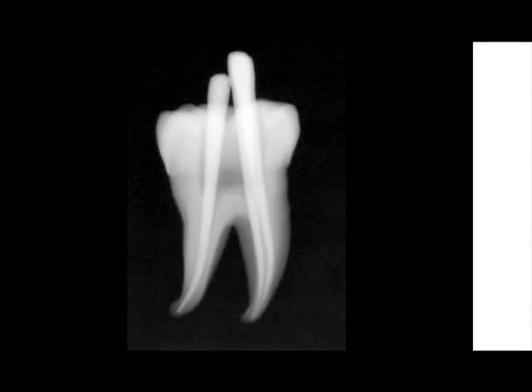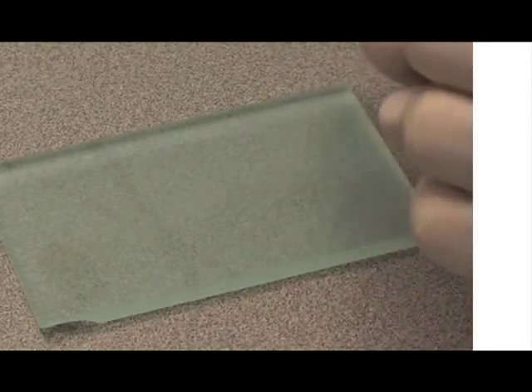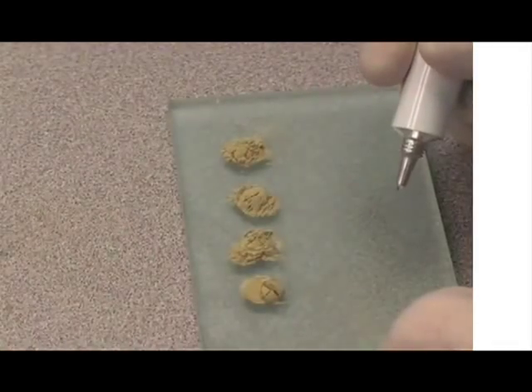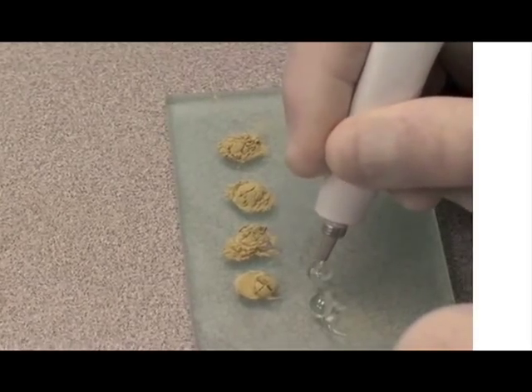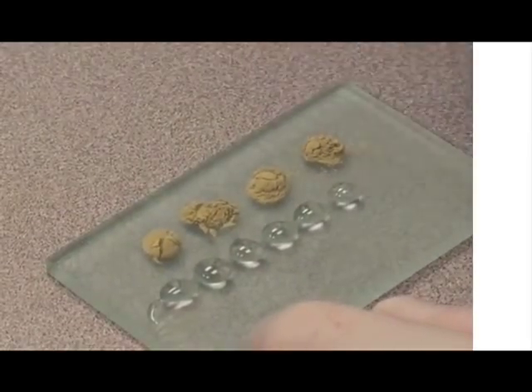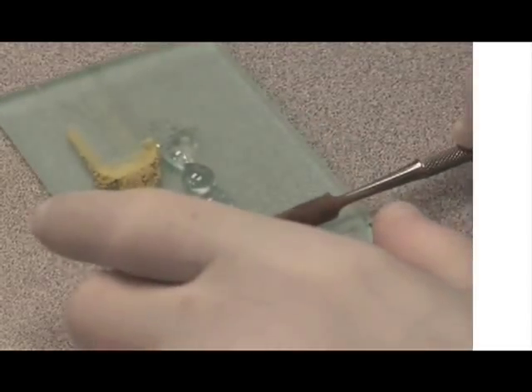To make a videotape, I am showing you a precise sequence that can be repeated over and over again. I placed four scoops of powder and six drops of gel. This makes a mix that has low viscosity, no granularity on the surface, and a sheen to its surface. The two-to-three ratio of powder to gel makes a flowable cement that has high radio opacity.